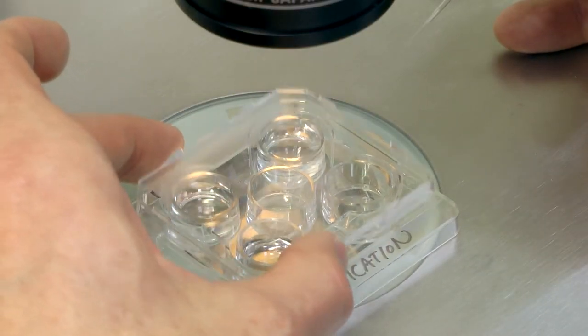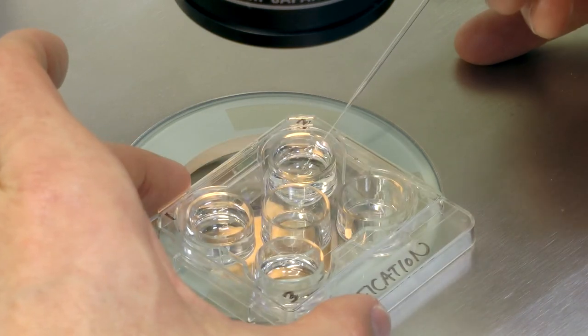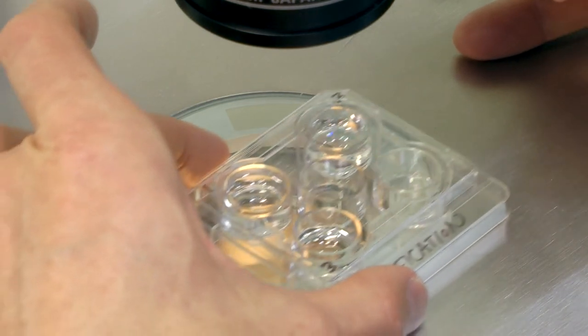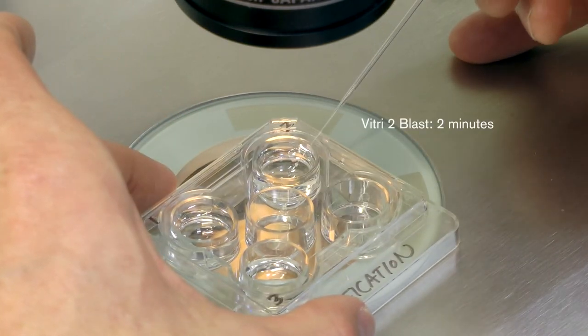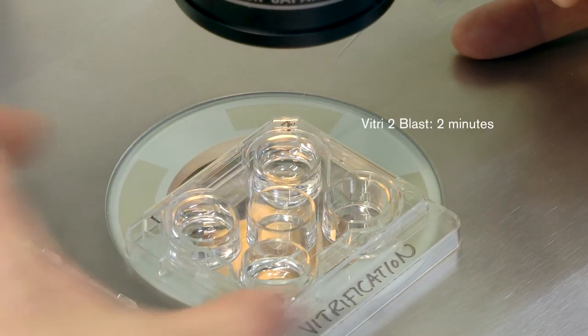After 5 minutes in the first solution, prime your pipette with the second solution and move your embryo from solution 1 into solution 2. Your blastocyst will remain in this solution for 2 minutes.